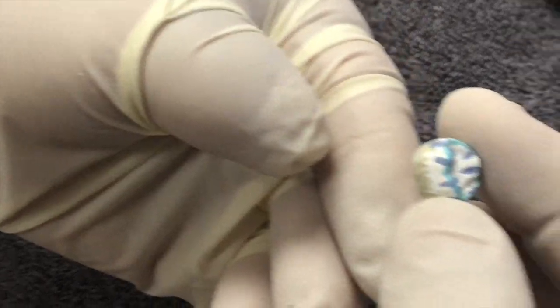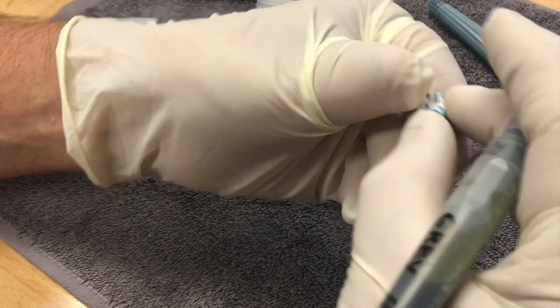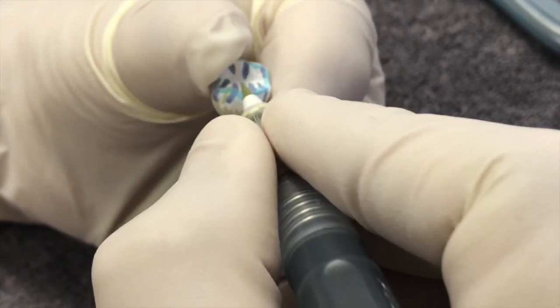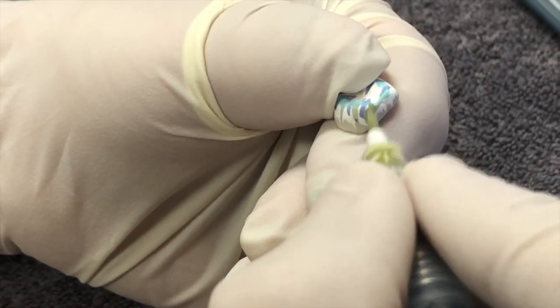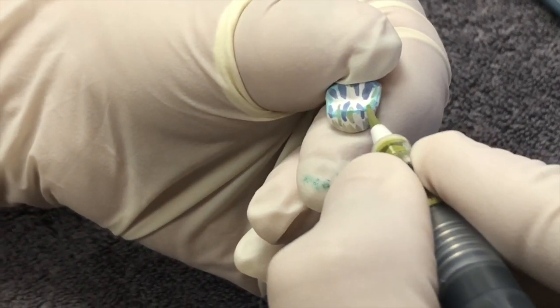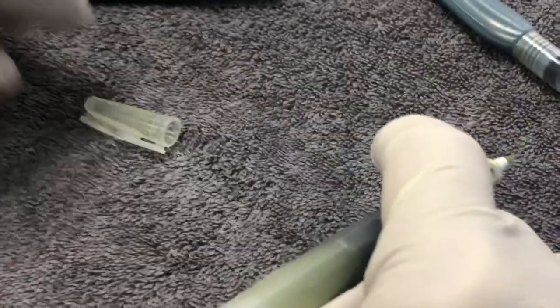Then I will use my violet or my gray — that was my violet. The gray will go in the interproximal areas a little bit, and then down in here. A little more in the interproximals because I like that grayness, that blueness in the interproximal areas. And that's how you enhance your zirconia — that's your Tech in Two for today.